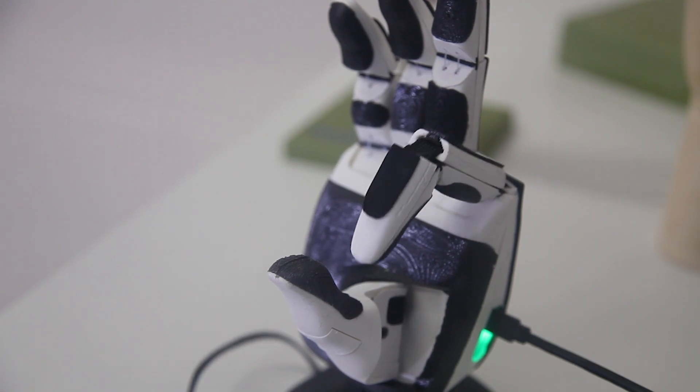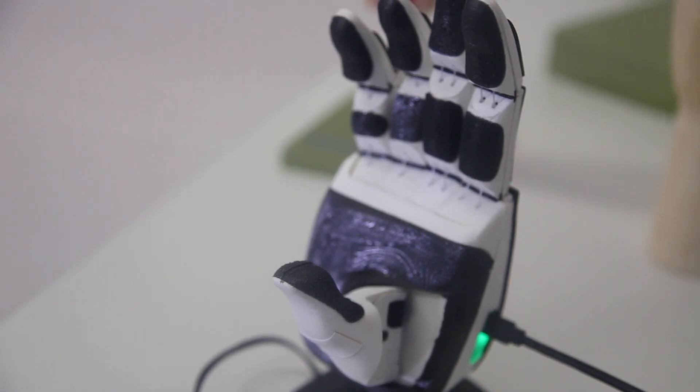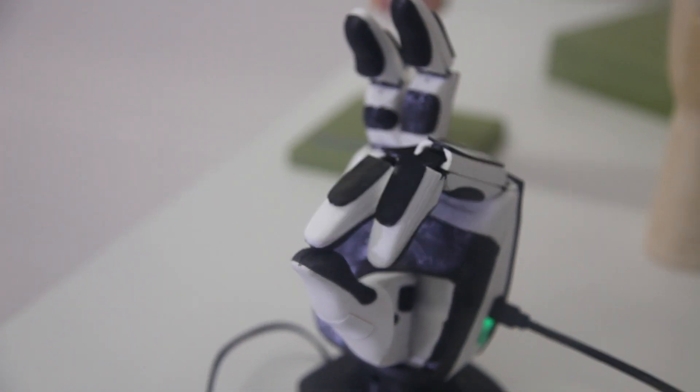That is, users are missing the sense of touch, the force on the fingertips, and the sense of where the hand is in space — how open or closed the fingers are at any given time. This means that users have to focus really hard on controlling the devices and control isn't very natural.